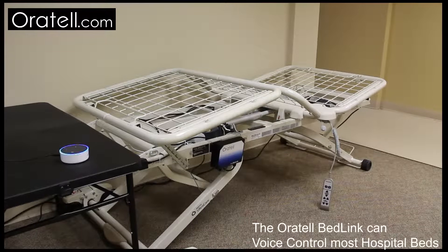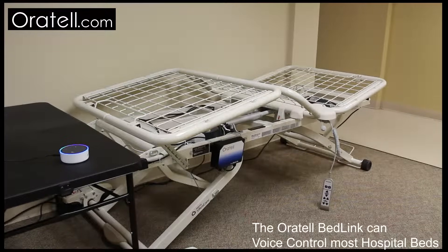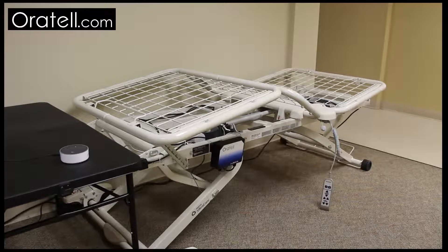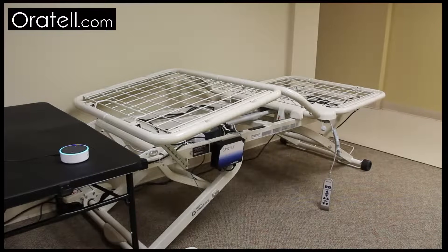Alexa, tell bed control, lower my head down, 1. Lowering your head down, 1.